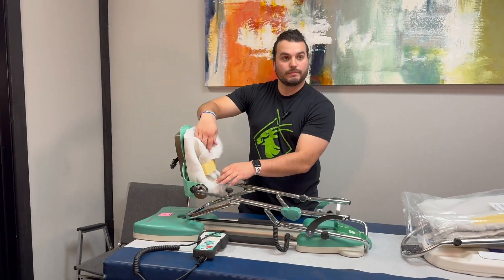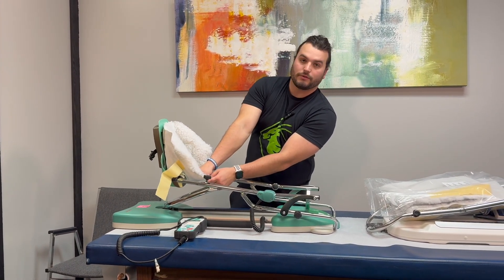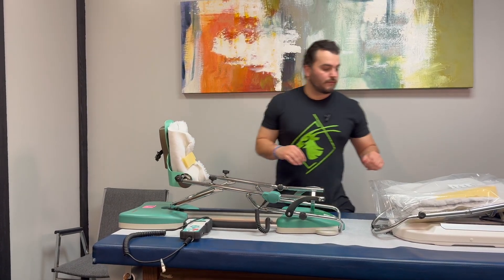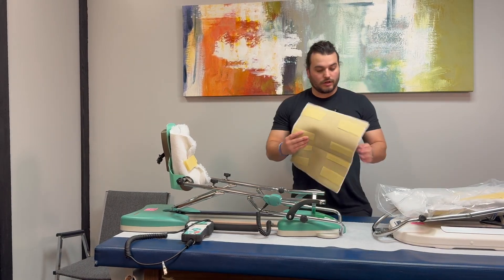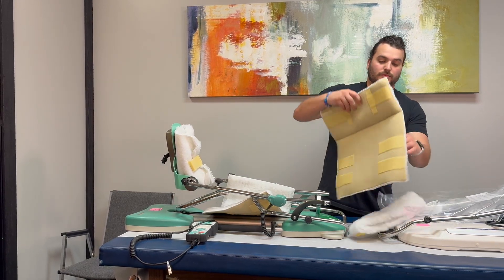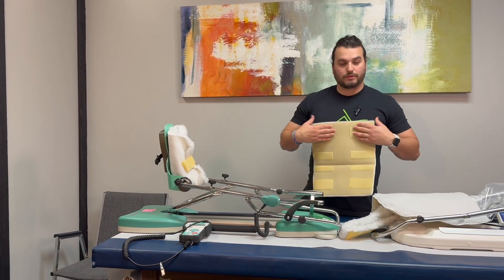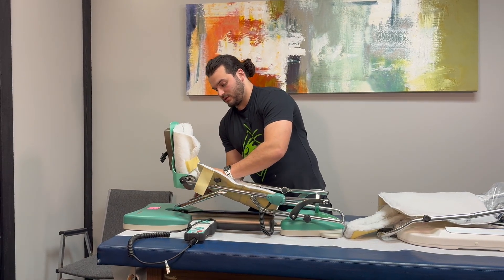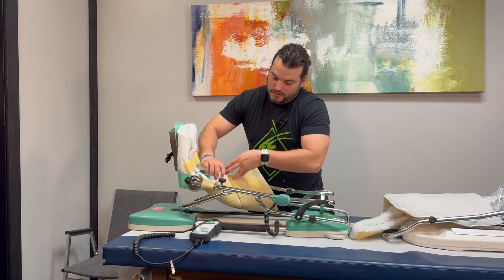So this right here is the foot piece. You just want the hook part down, just where your foot can rest right on the CPM. I'm just going to put that on first. On the sheepskin pads, you have two different sizes — get the bigger one first. The smaller one is going to be closer to the foot. You would just attach to each rod as so.